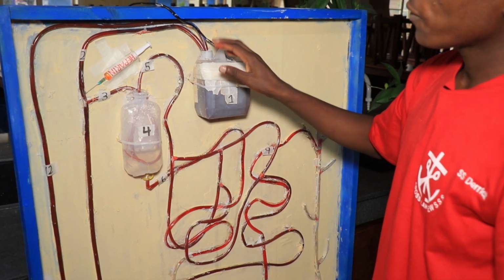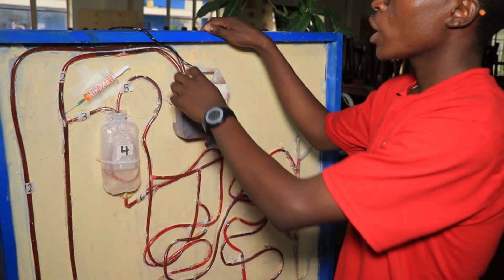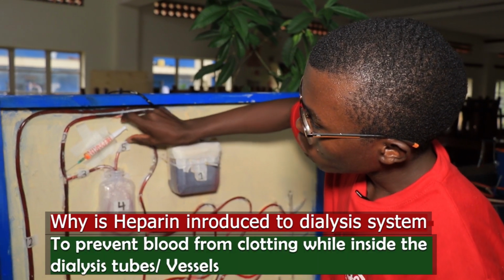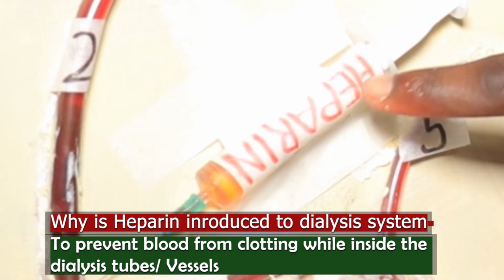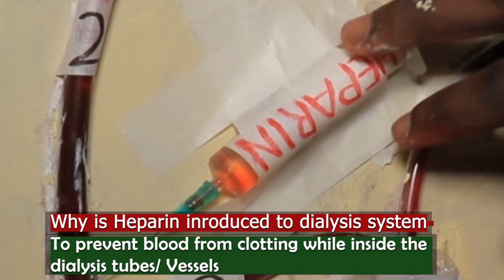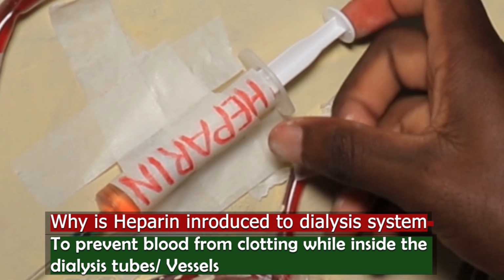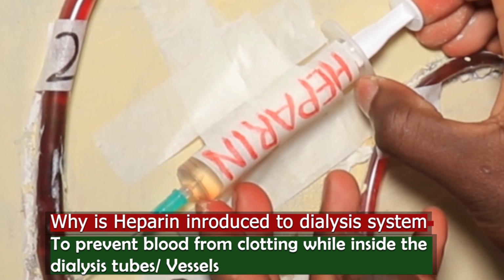However, as blood flows from the heart, we may have some cases of blood clotting. Blood may clot as it leaves the heart. So we have this portion here, where we have this syringe. This syringe contains heparin. Heparin is an anticoagulant. Heparin prevents blood from clotting. So at this point, this syringe helps us to add heparin to our system.